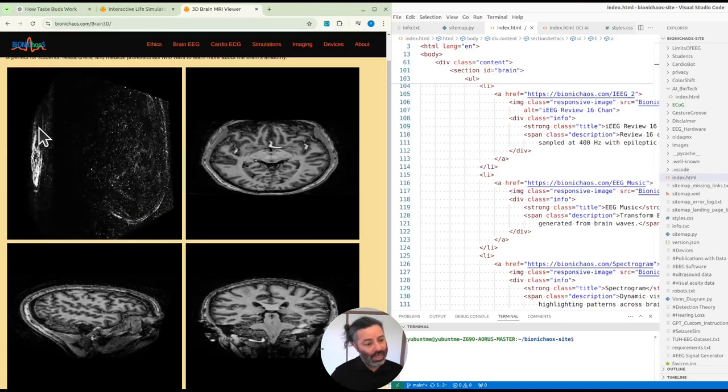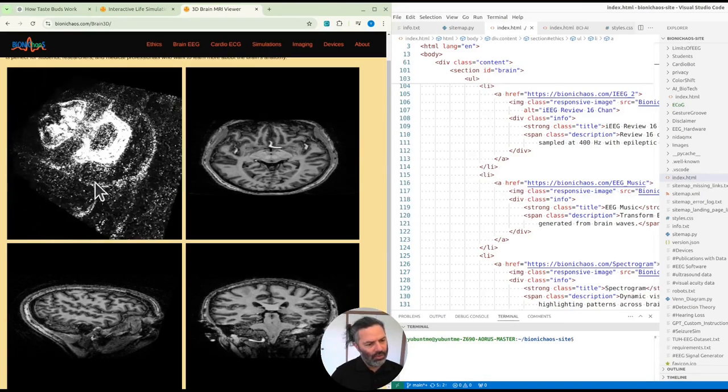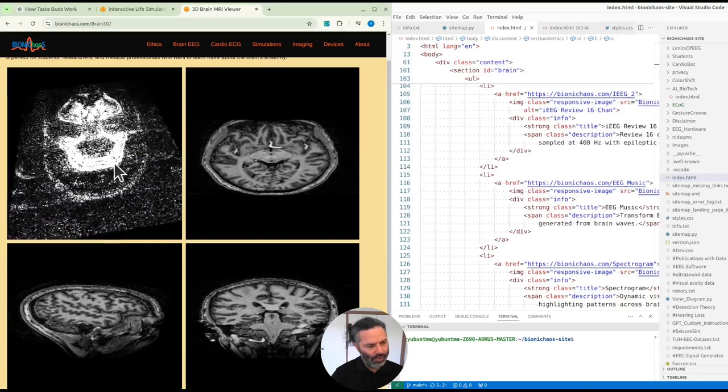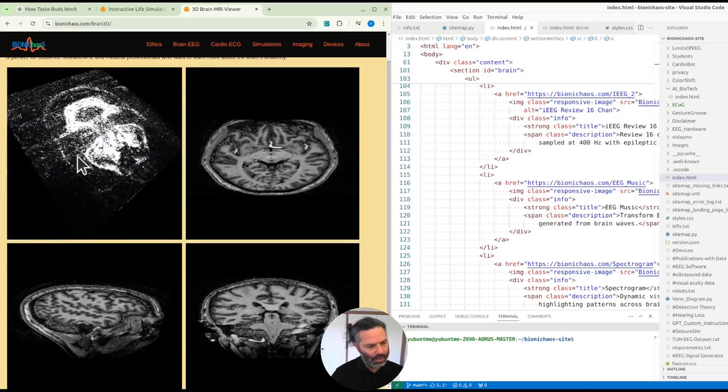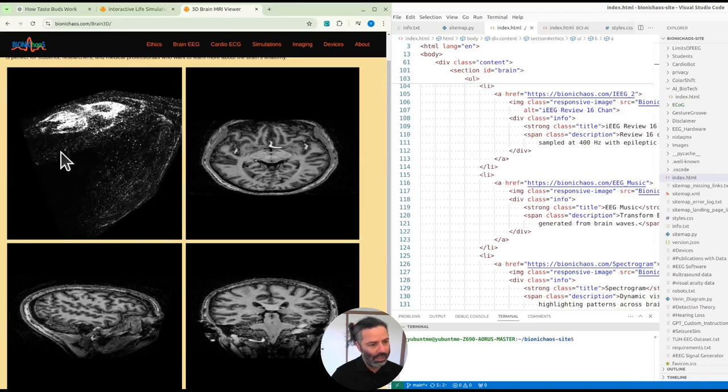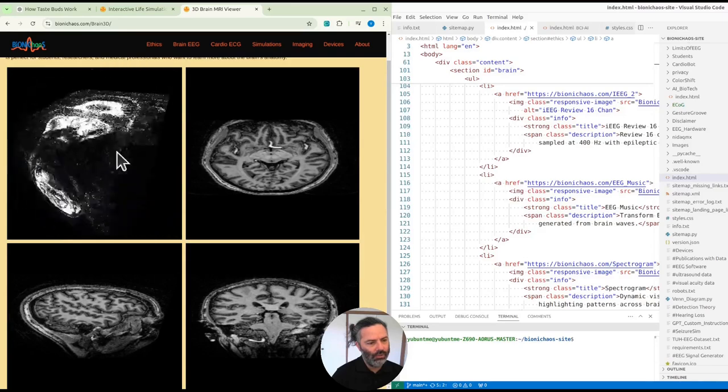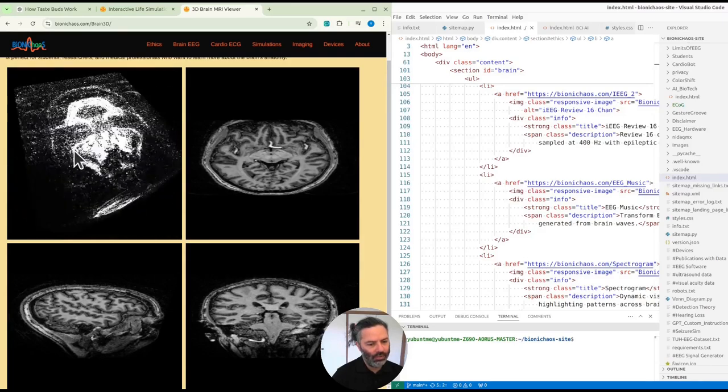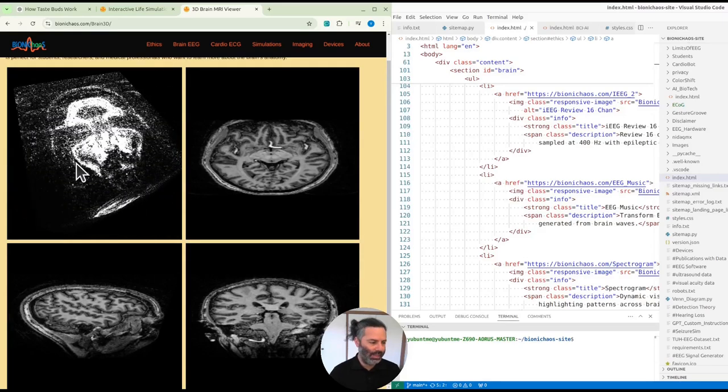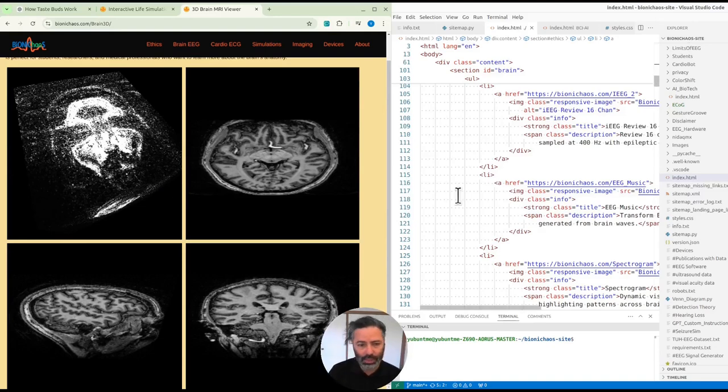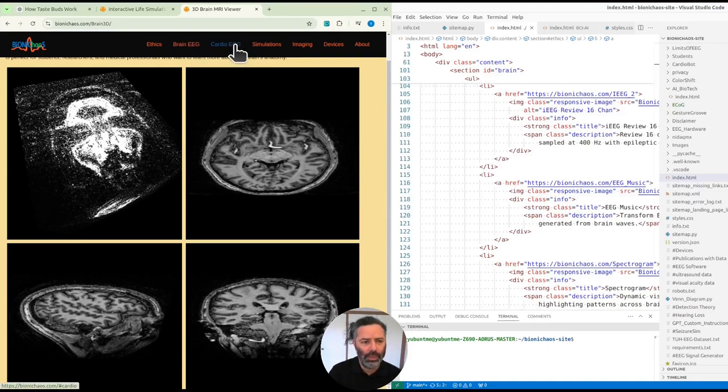The rendering of the volumetric data is not great. I don't know what's up with that. It's meant to look more like a 3D model of the brain of this specific scan. So I don't know how to - if anyone knows how to make it better, do let me know.